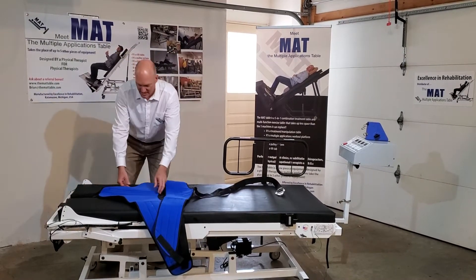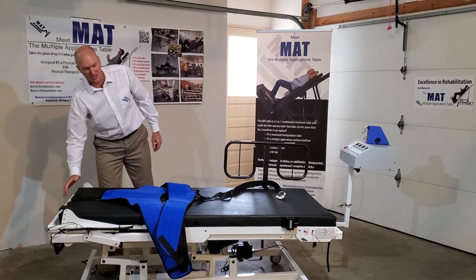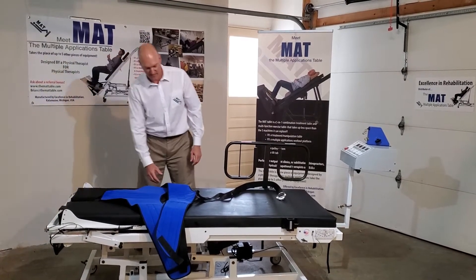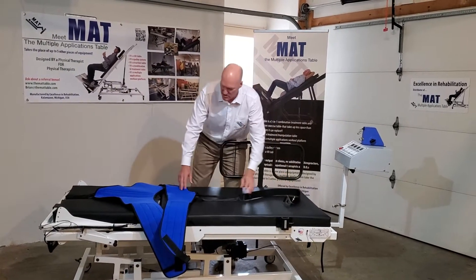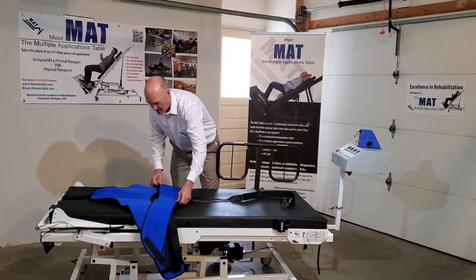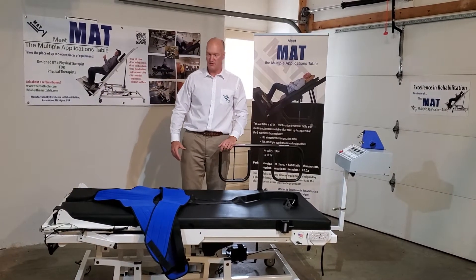You have to carefully get them on velcro. This particular belt on this table — the belts are included — attaches to the frame. I like to get the belt set up before the patient comes, as it's very difficult once the patient lies down; they often do upset the belts.